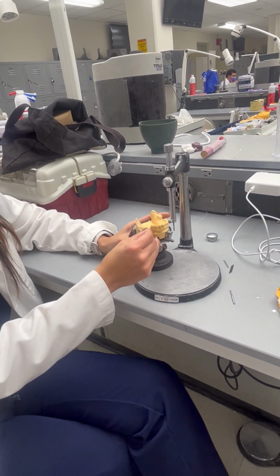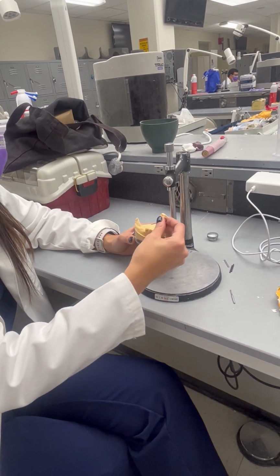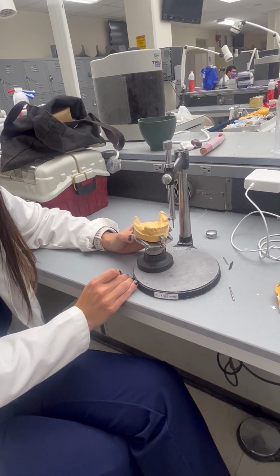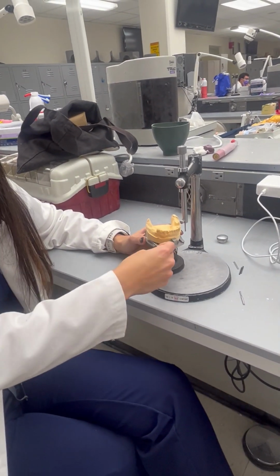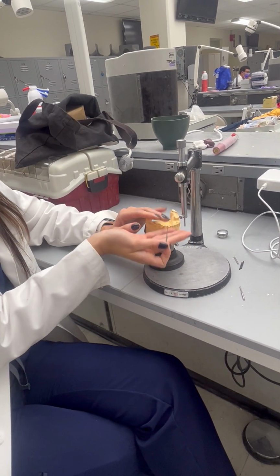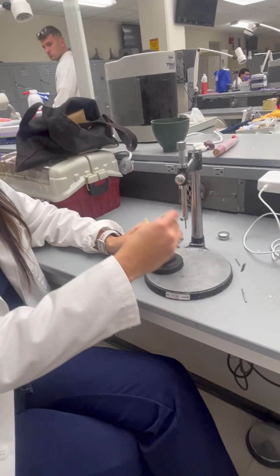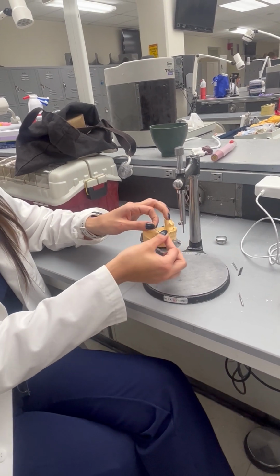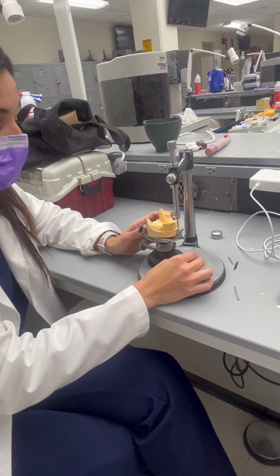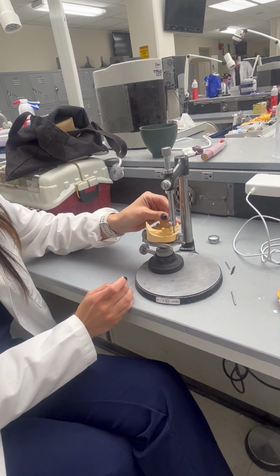When you have a free end, like an edentulous space like this, a distal extension, then you want your rest towards the mesial instead of next to the edentulous area, because it's more stable. Because you're going to change the lever. Basically, if you have everything in here, then it's easier for the partial to come out. But if you modify your rest in here, you're going to change the lever to a class 1, and it's going to be more difficult, or you're going to have more retention, basically. But it will be more stable, sorry. So when you have a distal extension, you want your rests under mesial, usually.